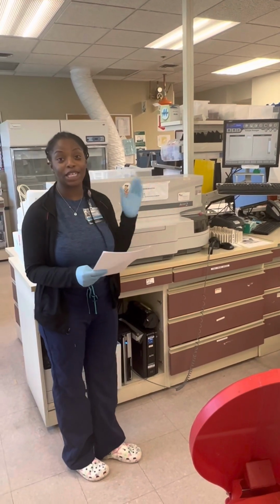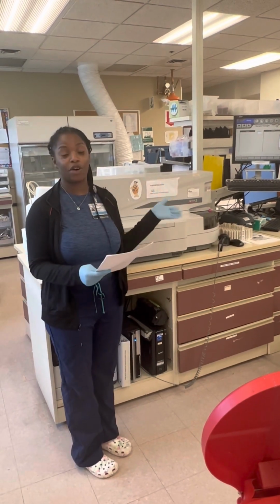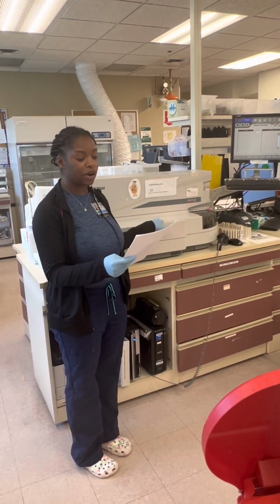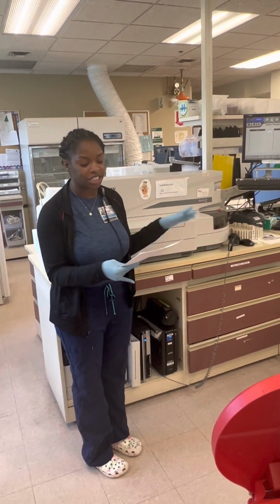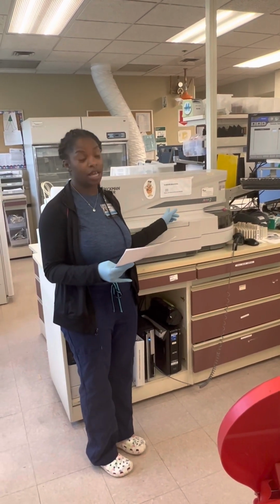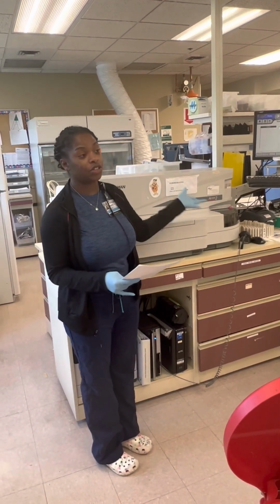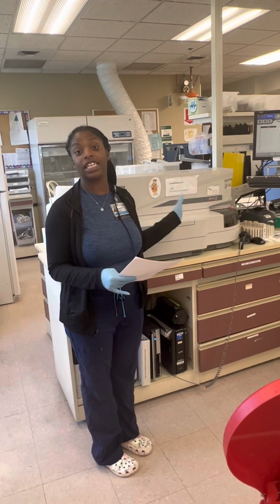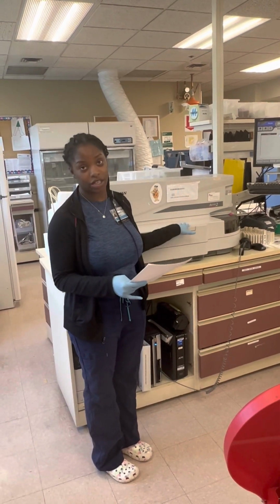So we're going to start by explaining the principle behind how the instrument works. As I stated before, immunoassays, and therefore this machine, use an antibody reagent in order to detect the antigen of interest, and it uses a mono or polyspecific reagent. So once again, we're looking for the TnI antigen and detecting our troponin levels.